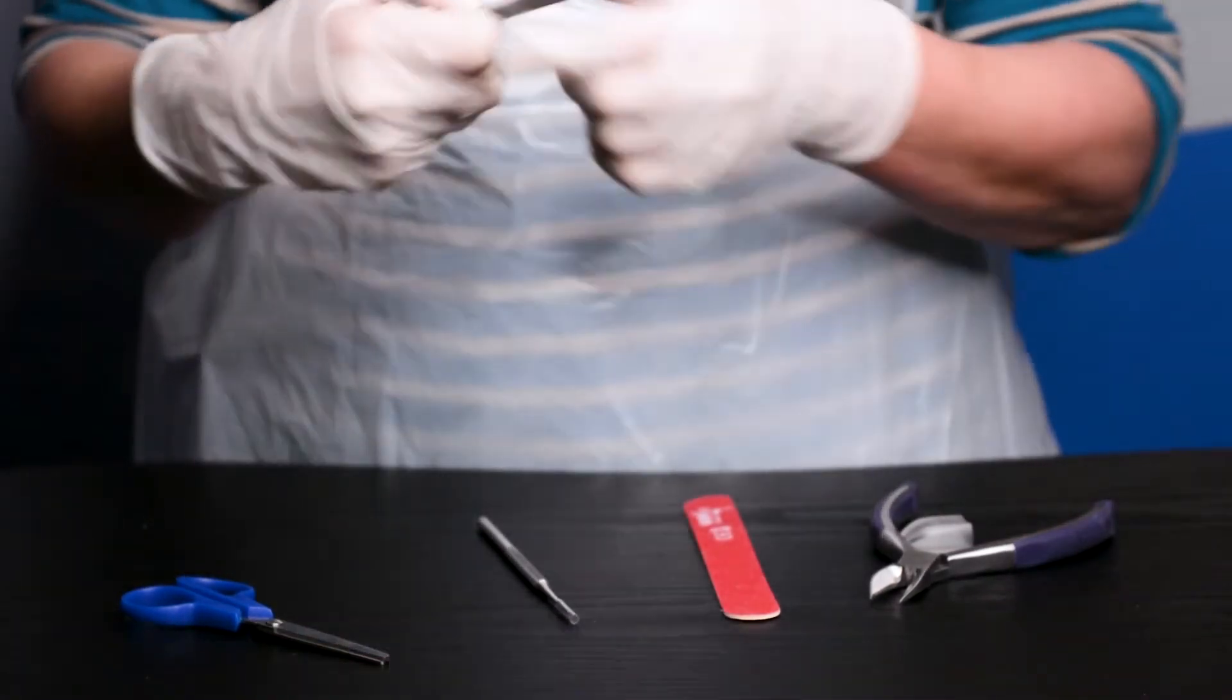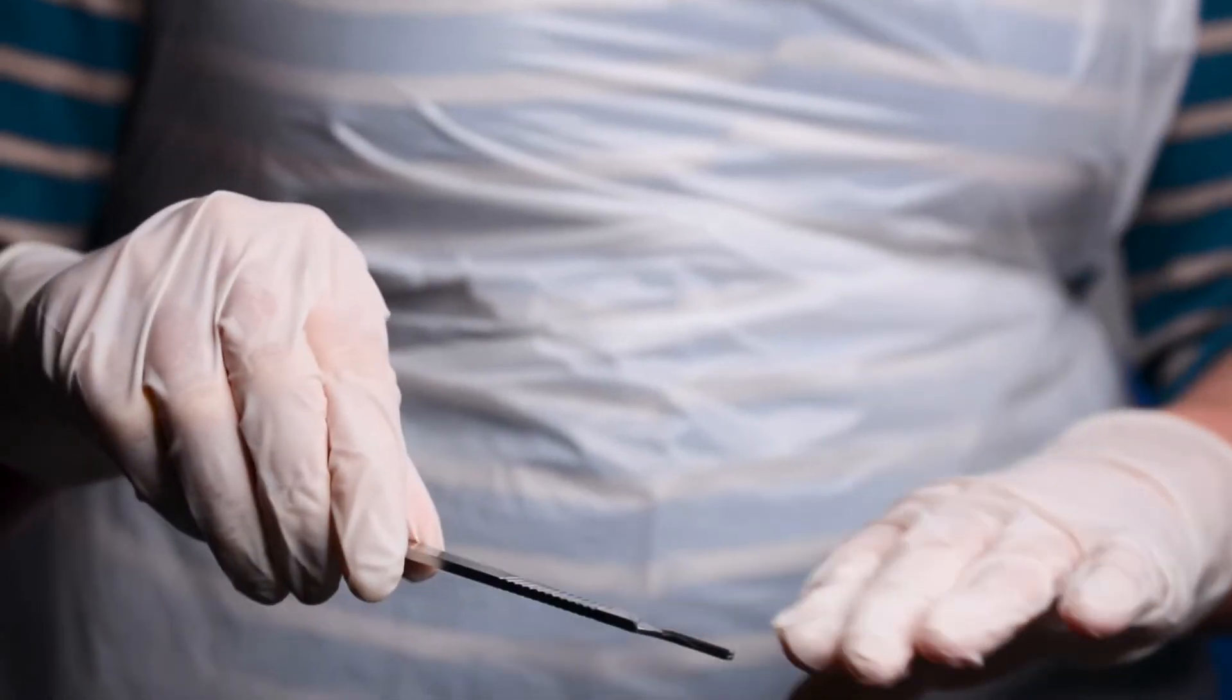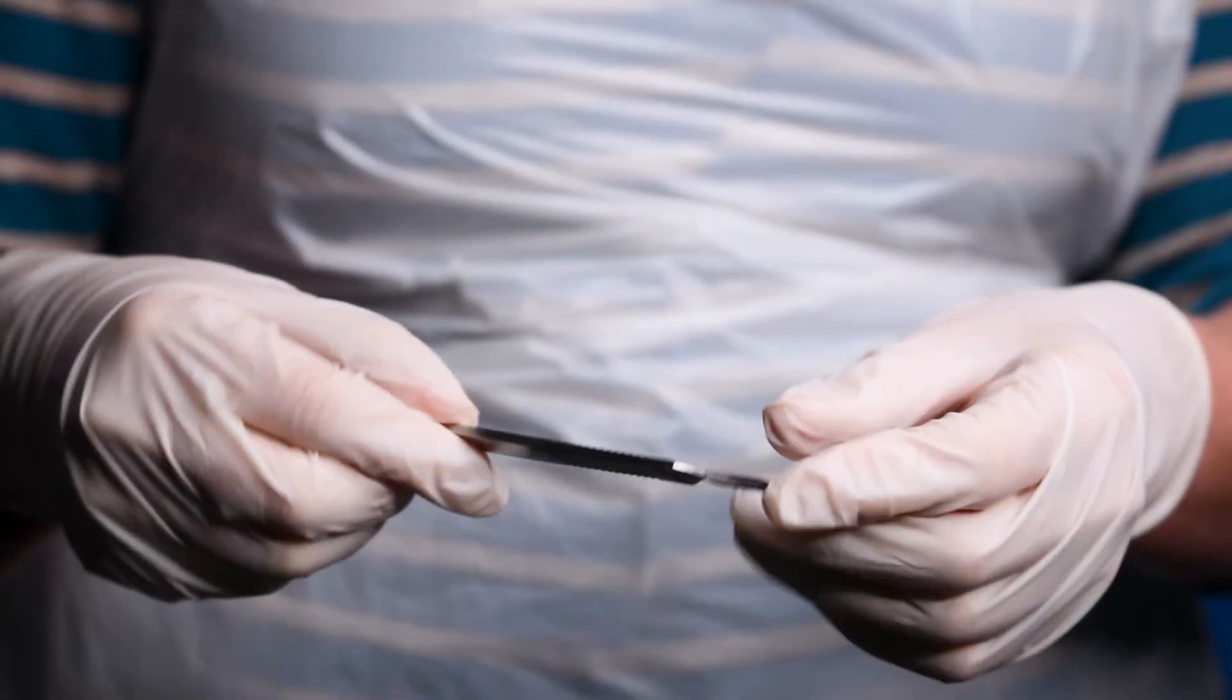The scalpel handle is a standard number three which fits all the usual blades used during a procedure.